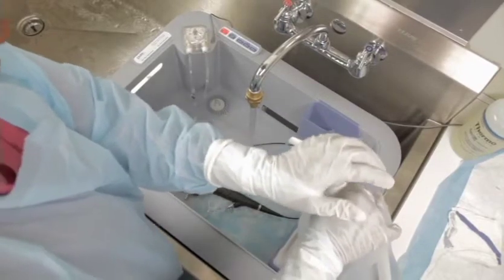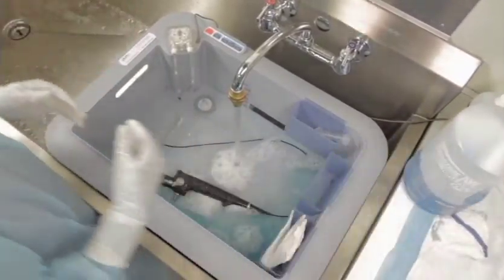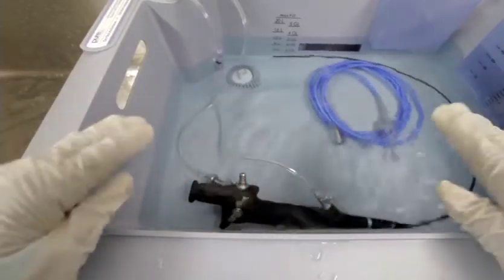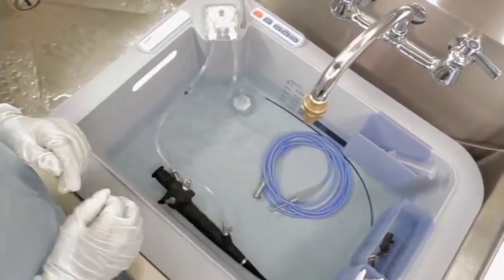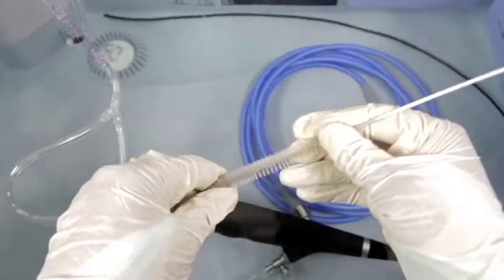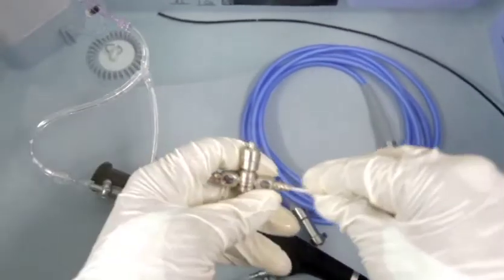The enzymatic detergent is most effective when the correct water temperature is used — if the water is too hot, it will not work effectively. Use a low-pressure device or an automated irrigation pump to flush the enzymatic detergent through the channels, or a 20cc syringe if no lower-pressure device is available. Allow the scope to soak in the enzymatic solution for five minutes. Use this time to clean the adapters and sealing caps using the correct-sized brush for each removable part, and be sure to rinse each part. Cleaning all removable parts is a vital step to effectively reprocessing flexible endoscopes.